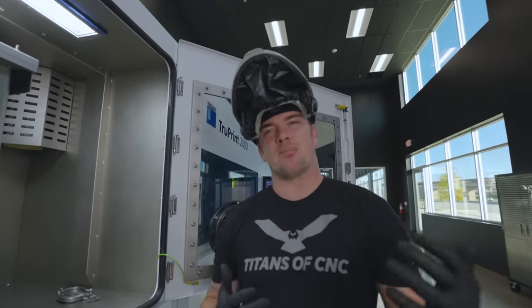While the design of this implant is very crucial, the material type that we choose to make it is also important. So what kind of material is safe enough to be implanted into your body?